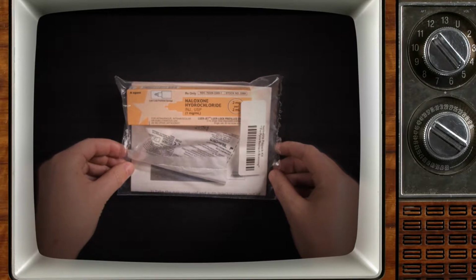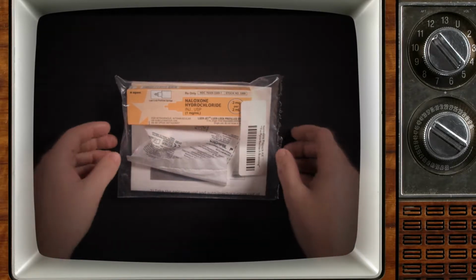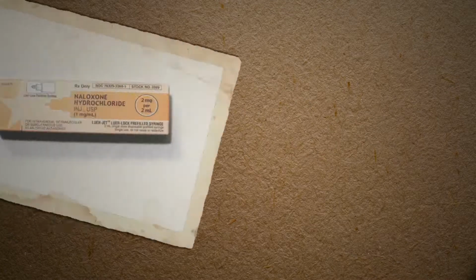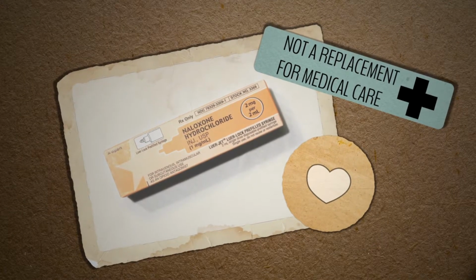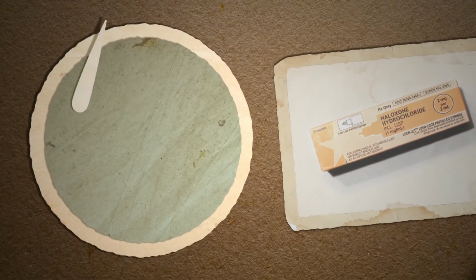If you're receiving a naloxone atomizer in an ER, ask the staff if they have a trainer kit you can use to practice. After administering naloxone, call 911 right away. Naloxone is not a replacement for medical care, it just helps to keep someone alive while you wait for professional help. Naloxone works in seconds to minutes.